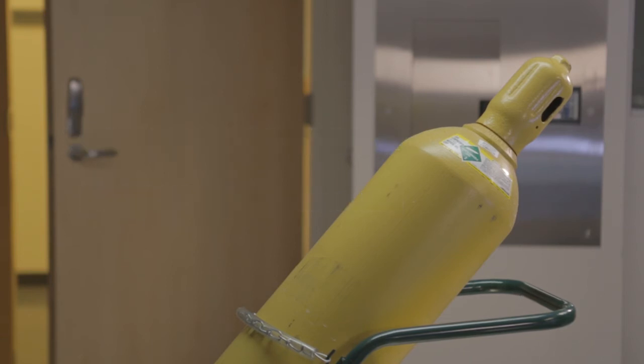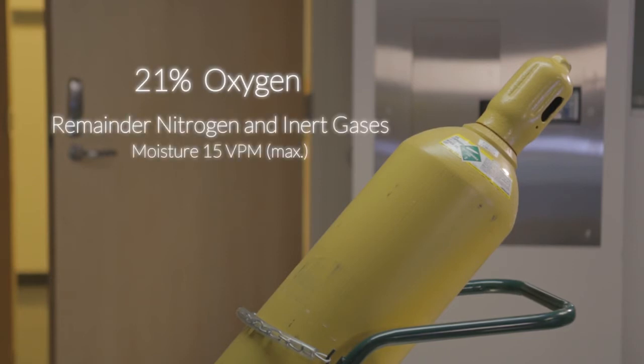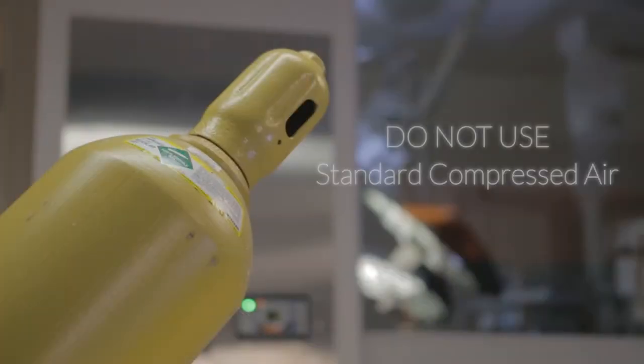If using medical grade compressed air, the composition should be 21% oxygen and the balance should be nitrogen and inert gases. The moisture content should be 15 VPM maximum. Do not use standard compressed air with the Zimmer Air Dermatome 2.